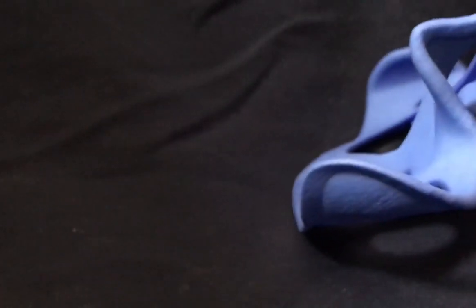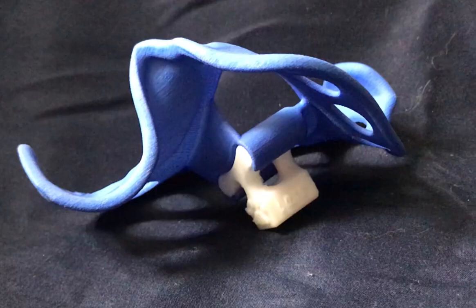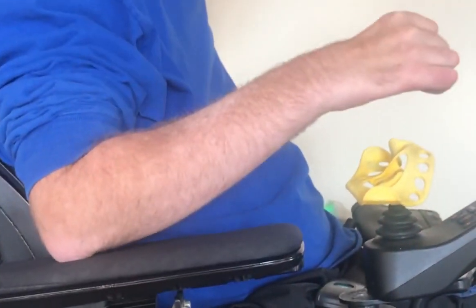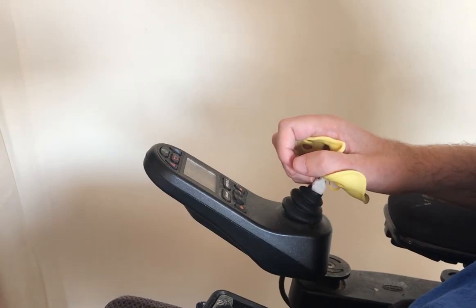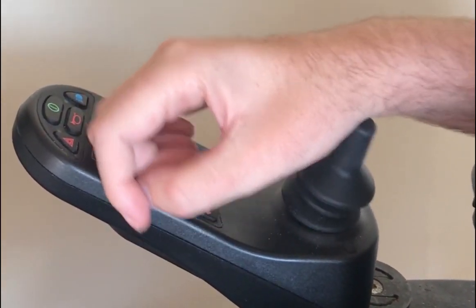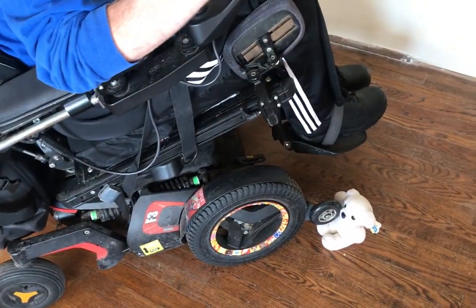You will also notice the front edge is thin — this is so it can be used by persons with contracted fingers. If a client's finger tightness is making it difficult to mount and dismount the handle, have them try sliding their fingers in from the inside between the palm and thumb troughs. Using a handle which catches your fingers is extremely important for clients without functional grasp. With the traditional knob, to transition from forward to reverse you need to readjust your hand, which is sometimes not convenient. It is also important to be able to quickly release the handle when performing an emergency stop.